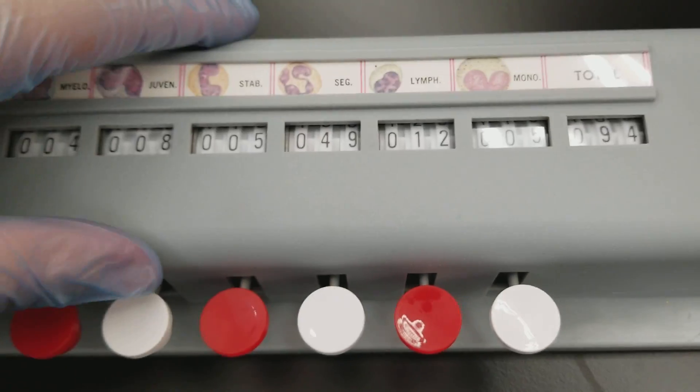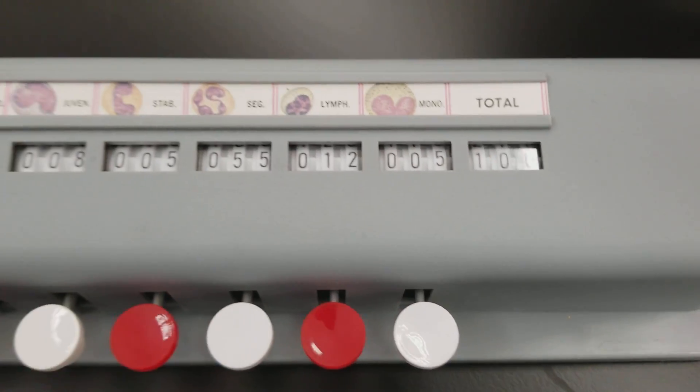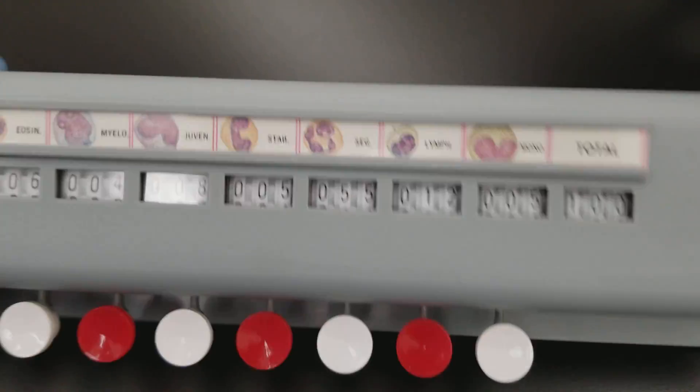So currently, I'm at 94 total. So I'll just keep pressing. Then you heard the ding, you get to 100. And then you stop.